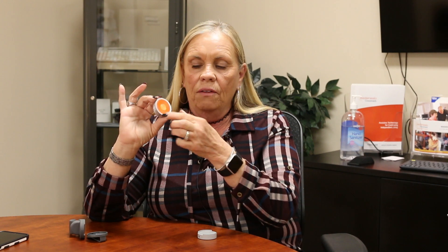This is basically just a little round device that has two buttons. The center button does one action and then the outside button does another action, and then there's also a spin wheel that allows me to navigate. I do have VoiceOver on my phone and a little bit later Nicole and I will be demonstrating how I can actually answer my phone without ever touching it.